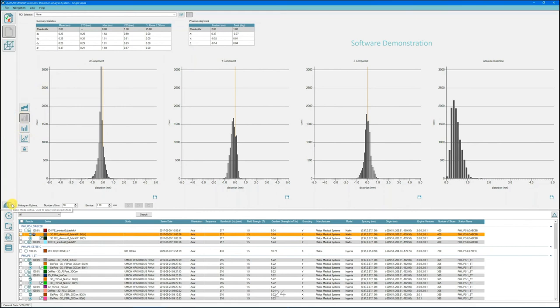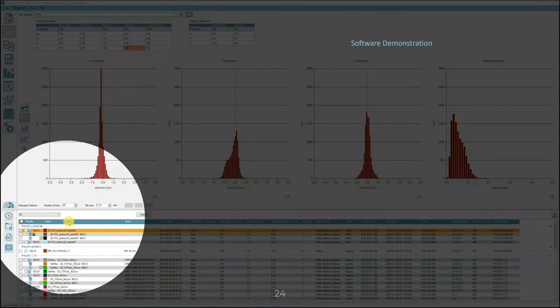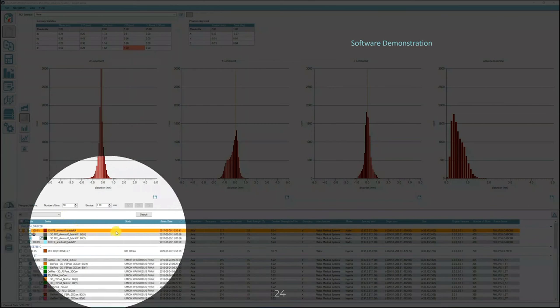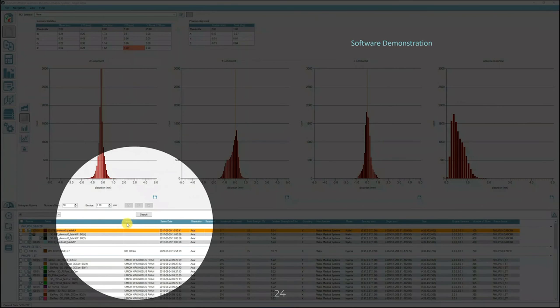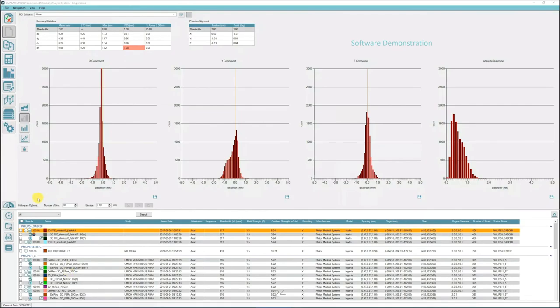A basic mode for simplified viewing is available for daily QA, as well as an advanced mode with more detailed results and features for periodic QA. After data series are imported, the results view of the lower section of the software tabulates imported series with the ability to customize headings such as series, sequence, bandwidth, and field strength, permitting users to organize the data in the most meaningful way. Selected series can be analyzed using the analysis engine, with the software reporting the number of successfully identified control points on the phantom boundary, typically 100%.